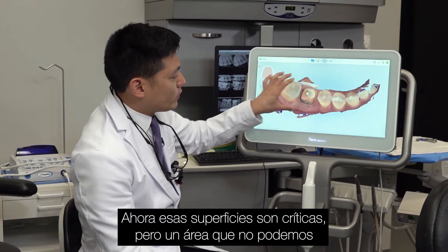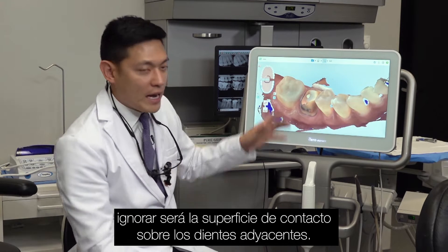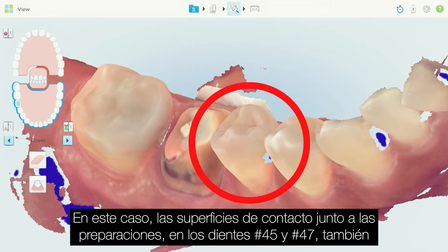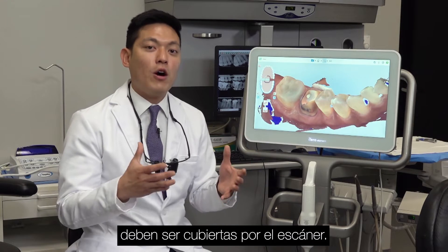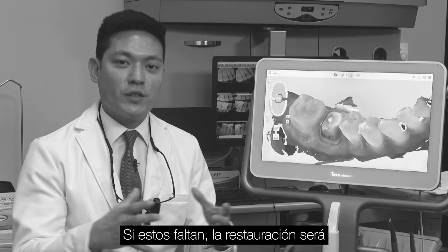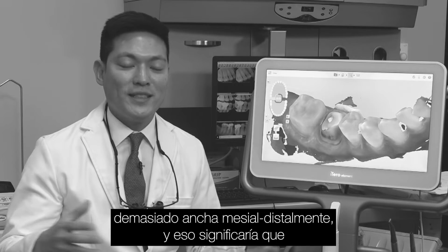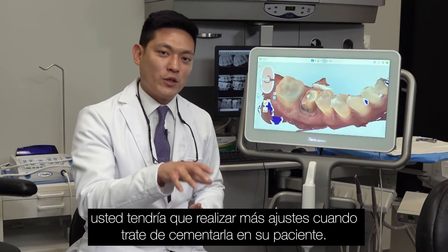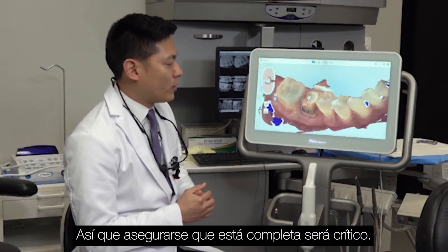Now those surfaces are certainly critical, but an area we can't ignore will be the contact surfaces over the adjacent teeth. So in this case, number 29 and 31 — those contact surfaces next to the prep also have to be filled in. If those are missing, the restoration is most likely going to be too wide mesial-distally, and that would mean a lot more adjustments on your end when you're going to try to seat it on the patient. So making sure that's filled in will be critical.